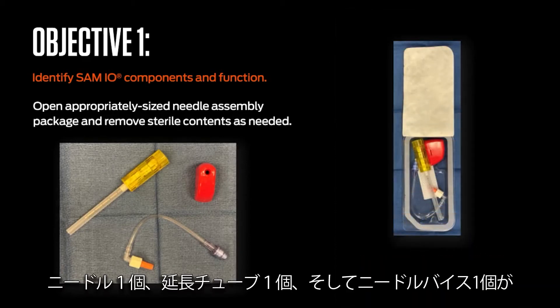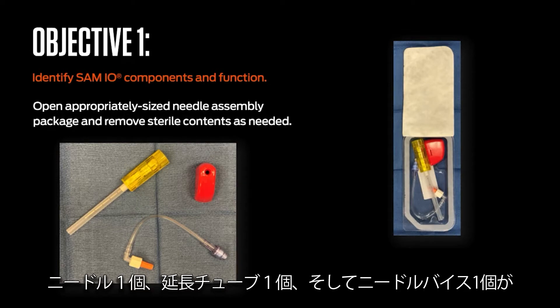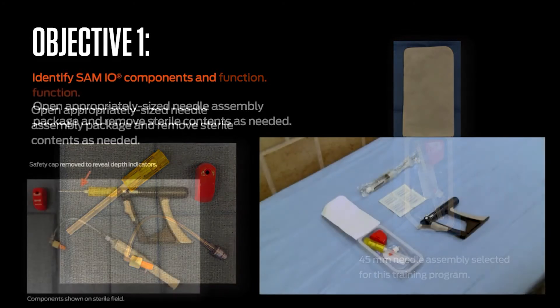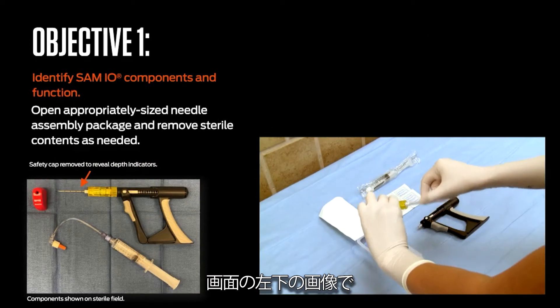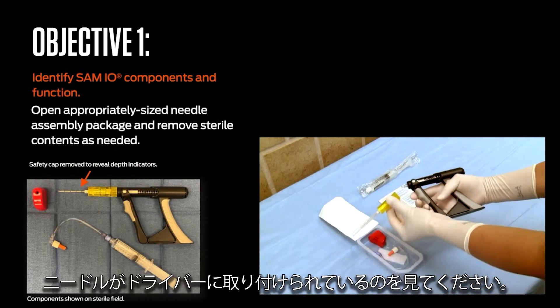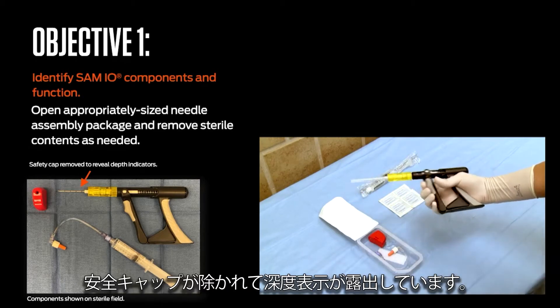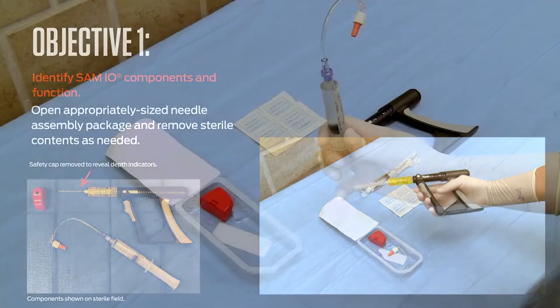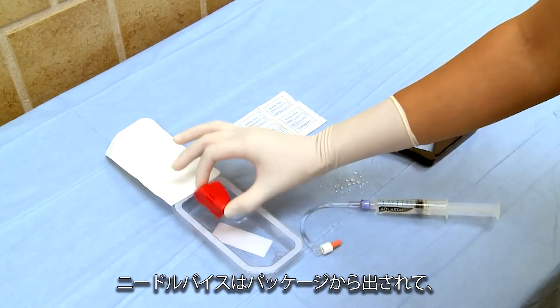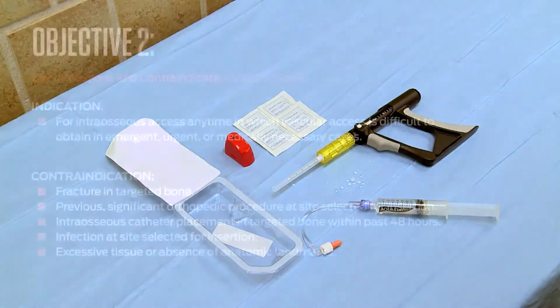Contents of the SAM-IO package include one needle assembly, one extension set, and one needle vise. Note that the needle assembly has been attached to the driver and the safety cap has been removed to reveal the depth indicators. Note that the extension set has been primed with saline and that the needle vise has been removed from the packaging and positioned for stylet retrieval.